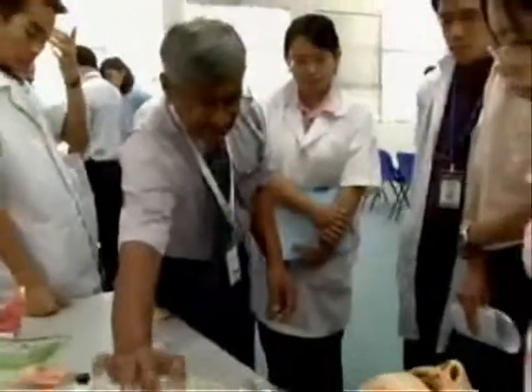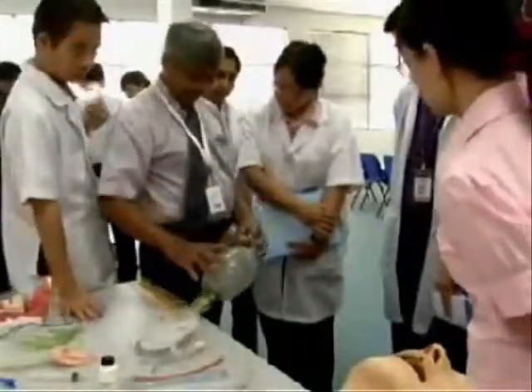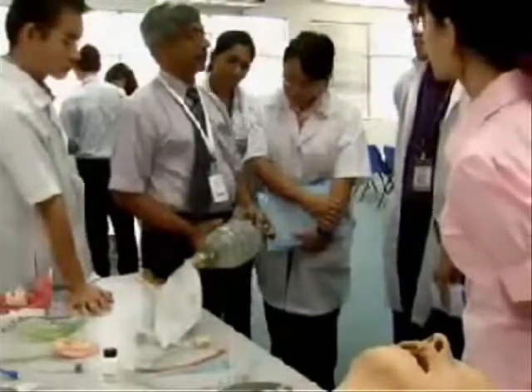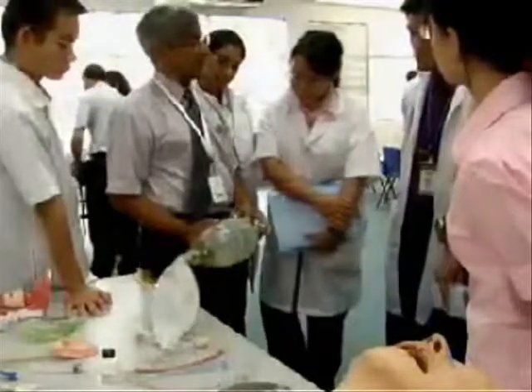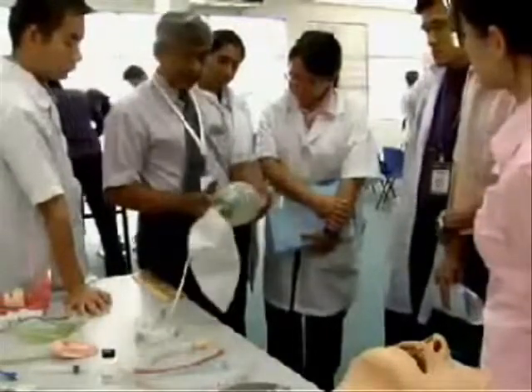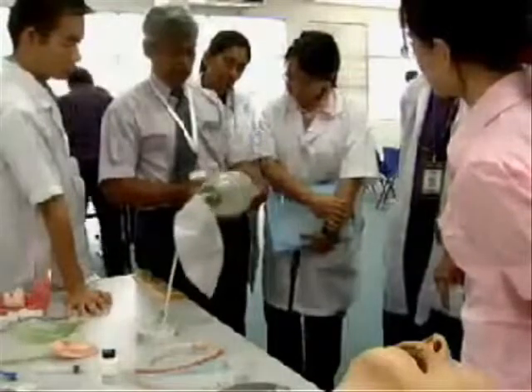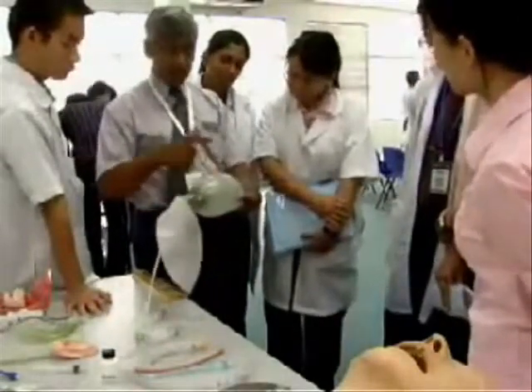And then there is this Ambu bag — they are everywhere: in the ambulance, in the ICU, in the ward, anywhere urgent things have to be handled. It's a self-inflating bag. When you press and let go, it inflates on its own. Two one-way valves.